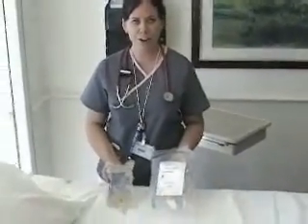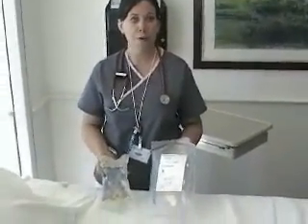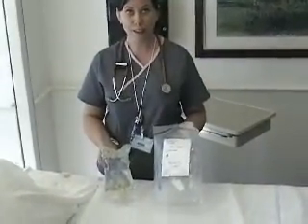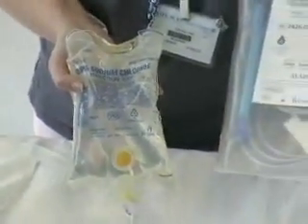Hi, I'm Danielle and I'm at Mission Hospital and I'm going to show you how to prime — or what some people call purge — the line. We have our normal saline here and we're just going to do like we're hooking up a regular IV. This is IV pump tubing, an infusion set, and just normal saline.